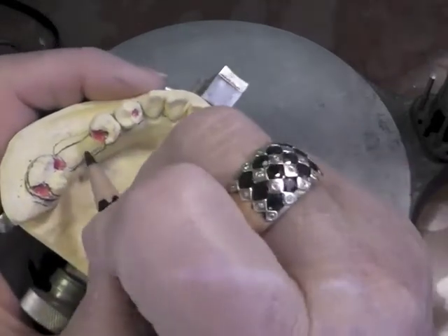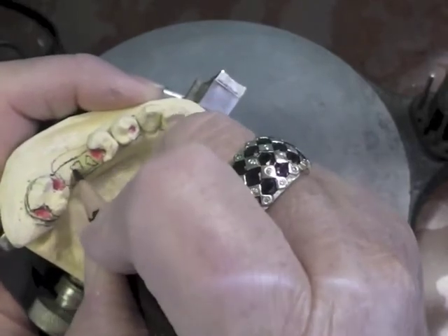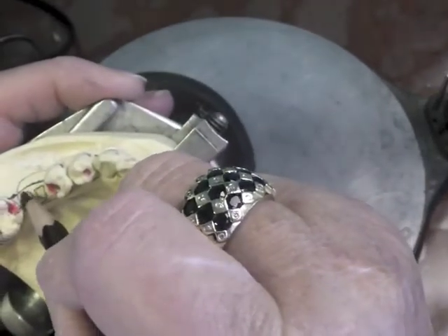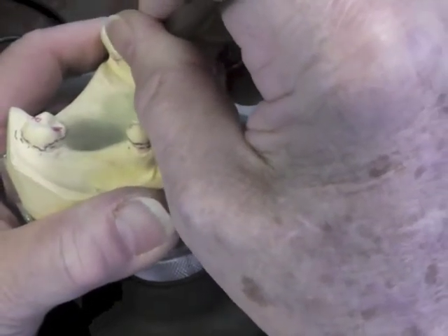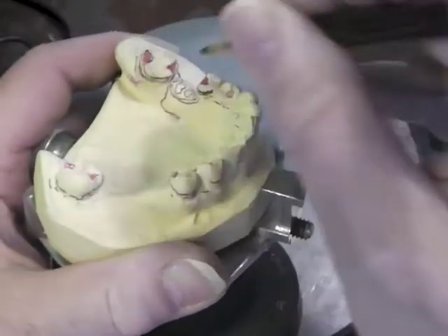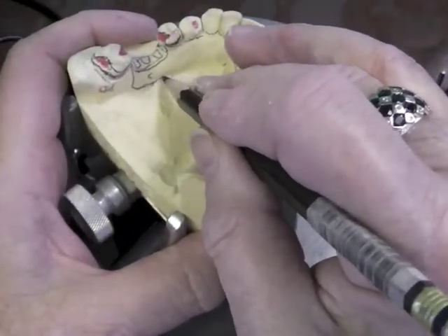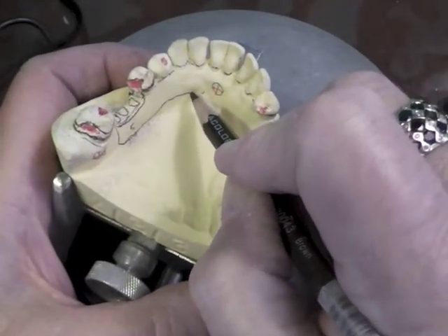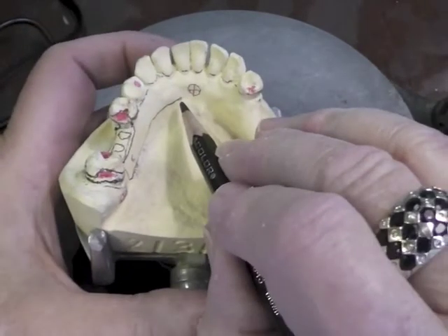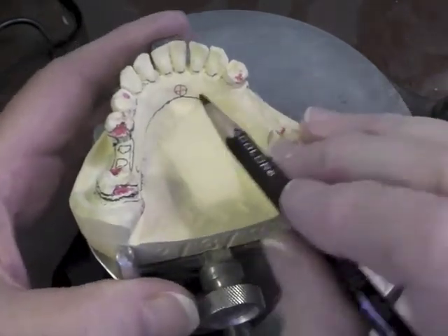On the base attachment we have to have some loops to hold that acrylic tooth in there, so we're going to have some open circles here to help hold that denture tooth into position. Now this guide plate also comes down here and will become the bottom of our major connector, which needs to be at least five millimeters wide in that area. It comes down to the functional floor of the mouth. Our major connector will swing around here and go down to the functional floor of the mouth — I see a little frenum attachment right there, so I'm not going to go any lower than that.